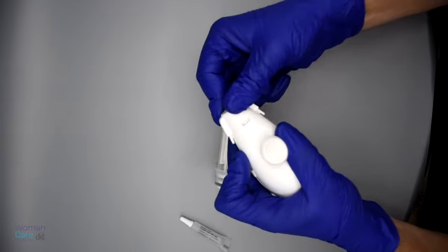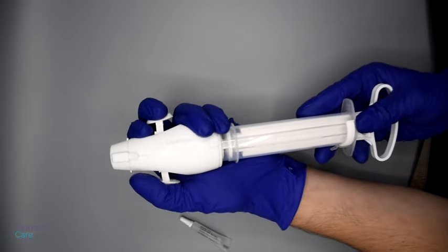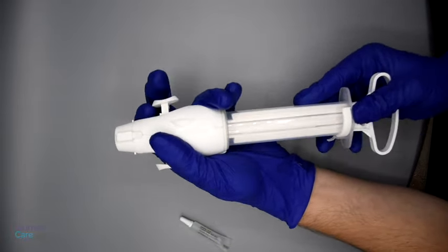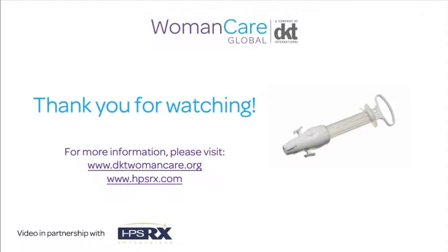Snap the valve cap on the top of the valve by following the ridges on the side. Push the cylinder into the base of the valve. Just make sure that you are not twisting or turning the cylinder over as you insert it.